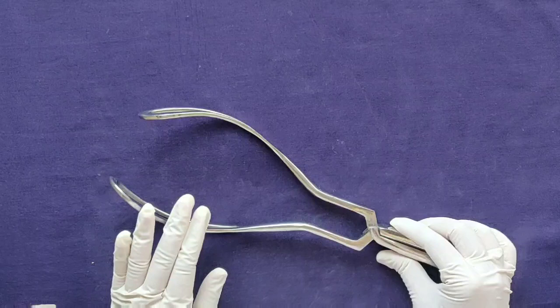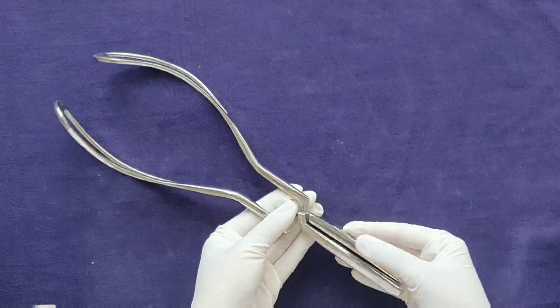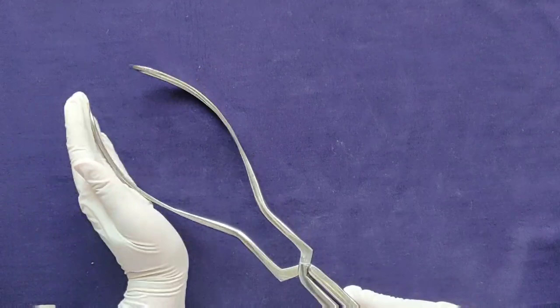There are various versions of forceps which differ from each other by features such as the length of the blade, presence or absence of fenestration, type of lock — whether it is a sliding lock or a fixed lock — and presence or absence of the pelvic curve.